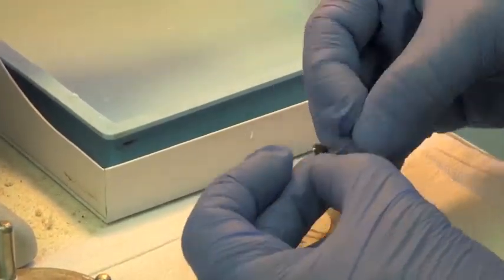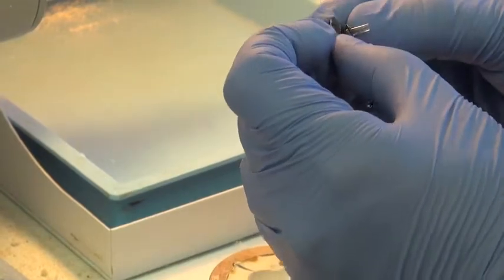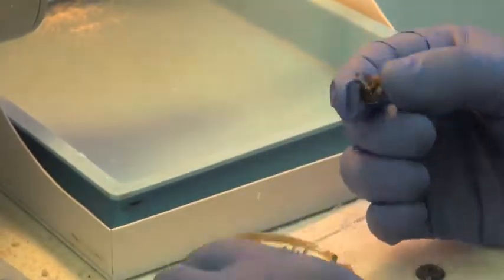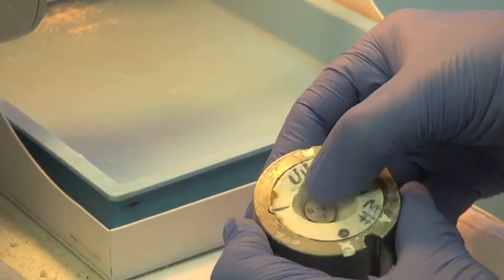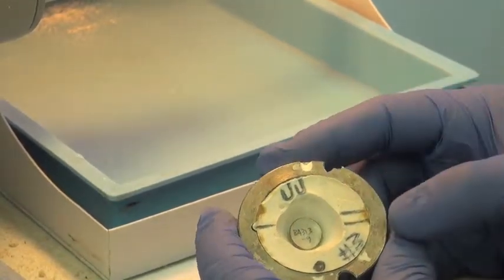So again, you just simply insert the stem into the washer and it's ready to be packed into the mold. And this is ready to be packed into sclera for the next stage of the prosthesis.